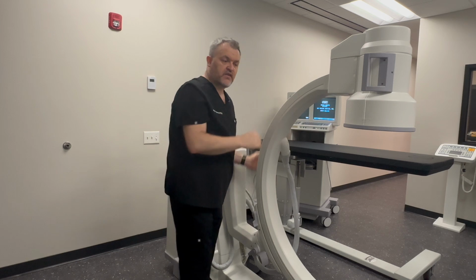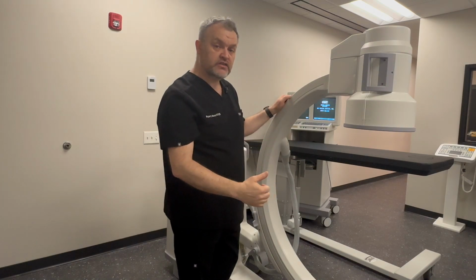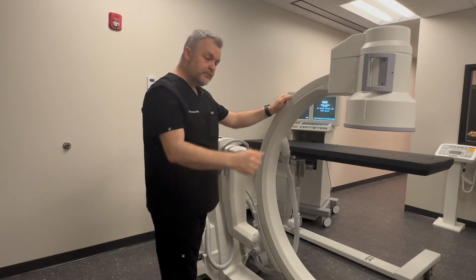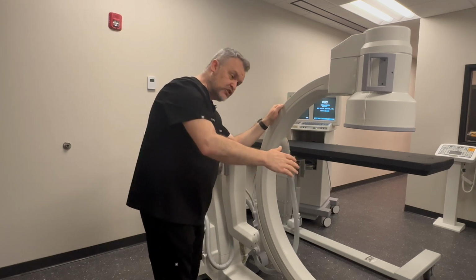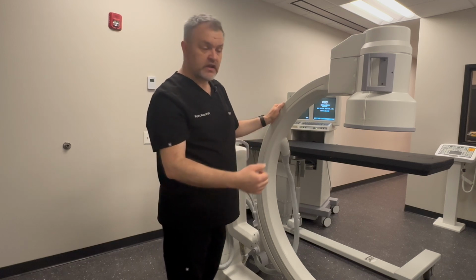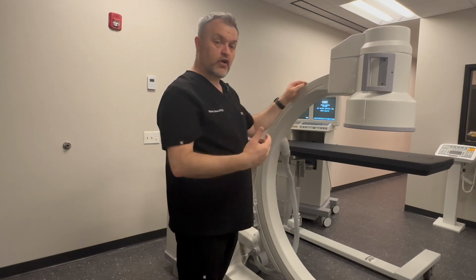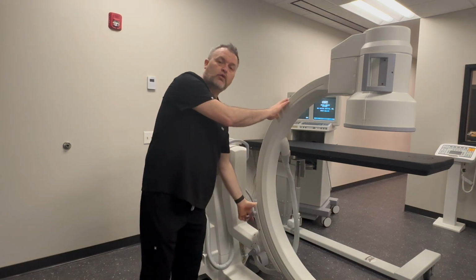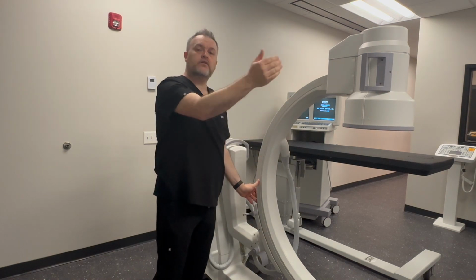When you operate this function, you have to make sure that you have clearance under the bed. So normally before I would sweep under the bed, I would just raise up the drape, make sure that there's no catheters, there's no drill lines, there's no obstructions, just so that then when I sweep, I have confidence that I'm not striking anything under the bed. So this one here is called your roll. So roll over, roll back.